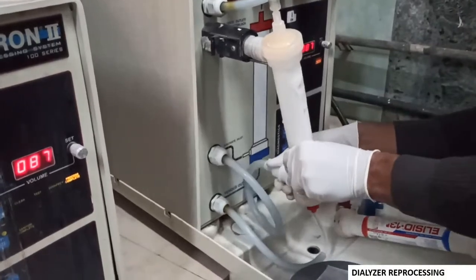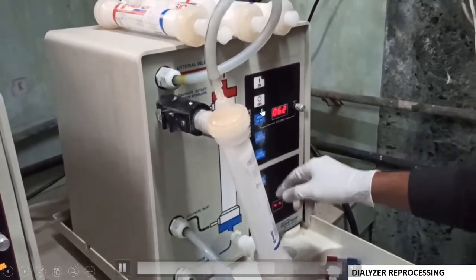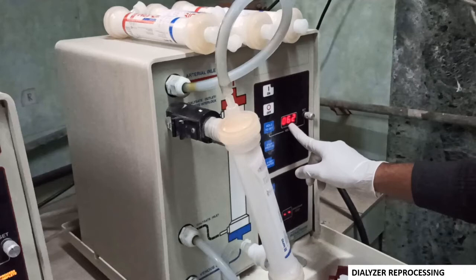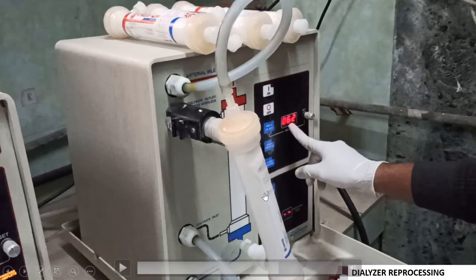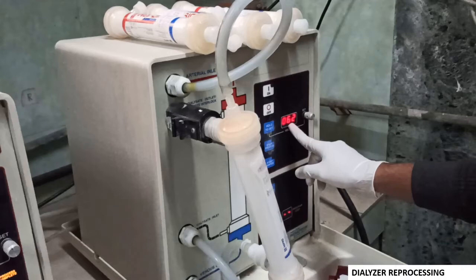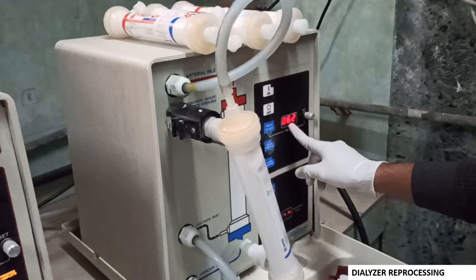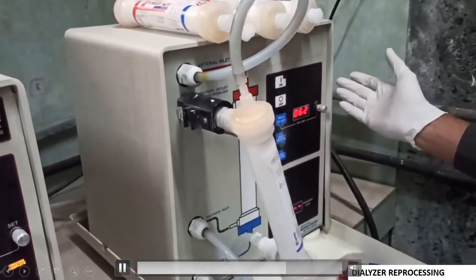Once the dialyser is connected, the readings shown here are for the previous dialyser. We have to switch it off and switch it on again. The hold button is used to set the limit for rejection. As per the guidelines, the fiber bundle volume has to be more than 80%. For this dialyser, the priming volume is 90 ml, so 80% means it has to be more than 72 ml. This setting can be changed; if the value comes below this, the dialyser has to be discarded and cannot be used for further dialysis. This fiber bundle volume setting is already set for the unit.